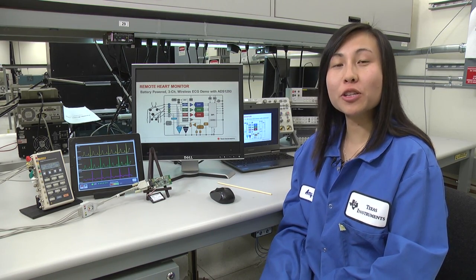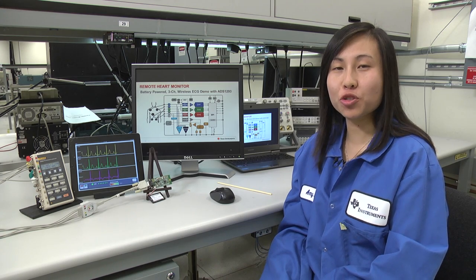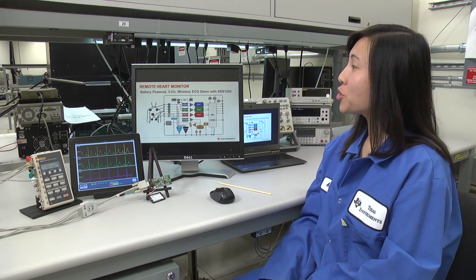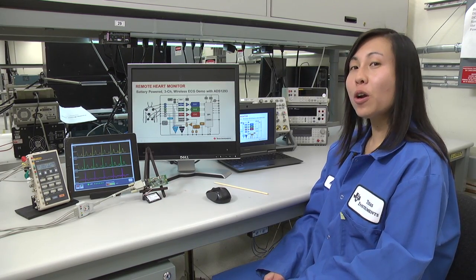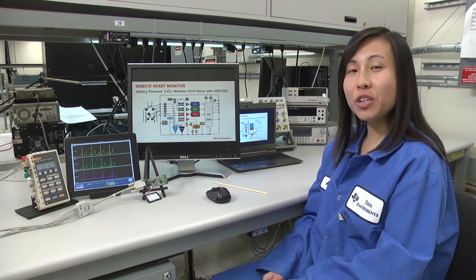Hi, my name is Amy Lee and I'm an Applications Engineer in the Integrated Signal Chain product line at Texas Instruments. Today I would like to show you the remote heart monitor demo, which is a battery-powered 3-channel wireless ECG demo with the newly released ADS1293.